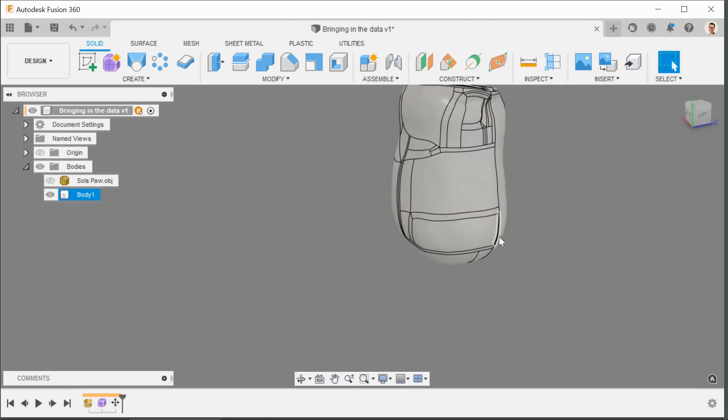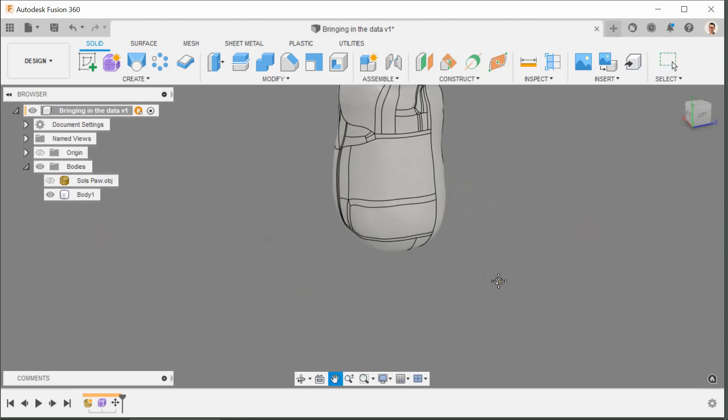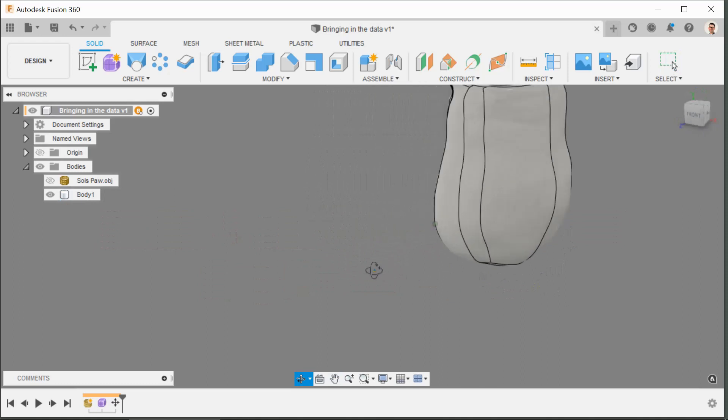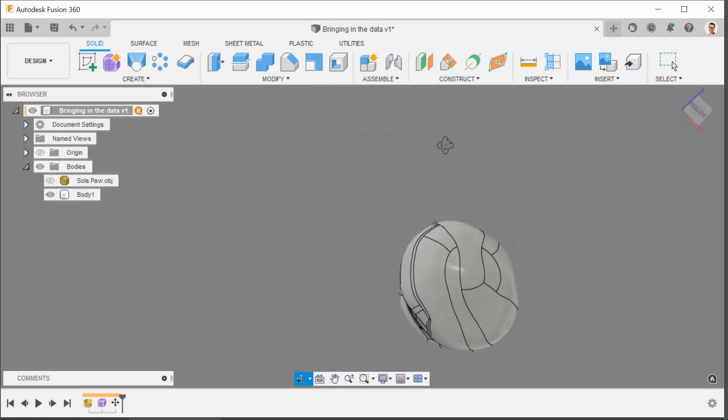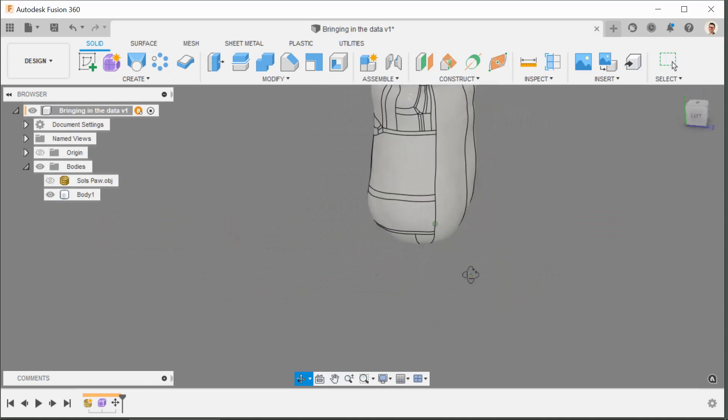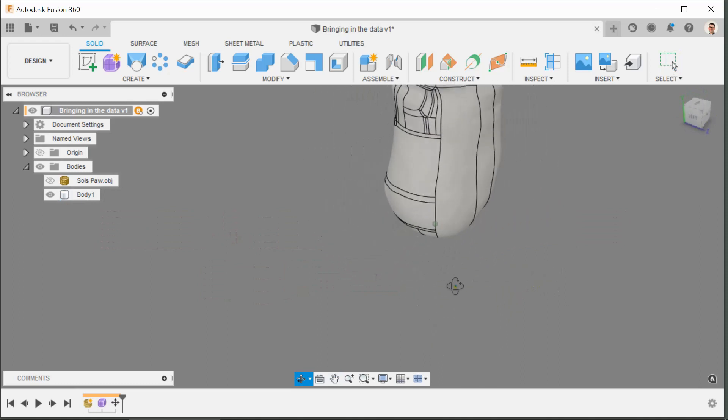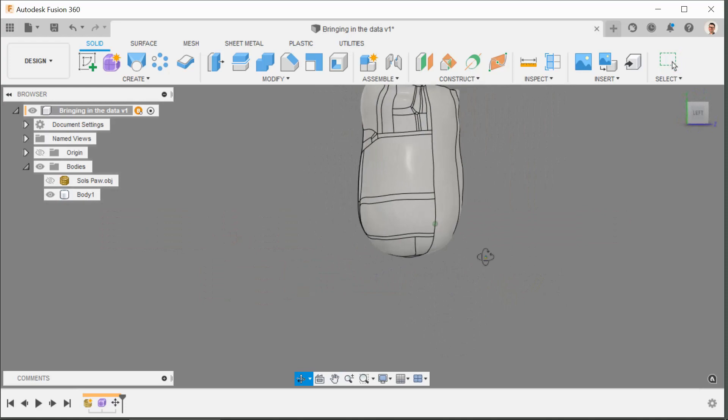If we shift and middle mouse button press, let's say we want this to be the focal point here on one of the outer condyles, click on that, that now becomes the pan handle that we grab the object by. So when I tilt now, the green dot there shows me that that's the pivot point.